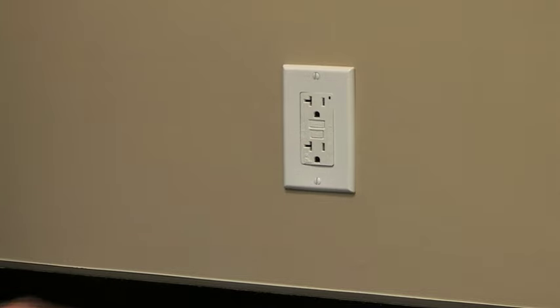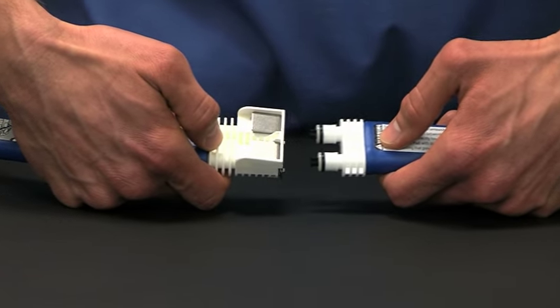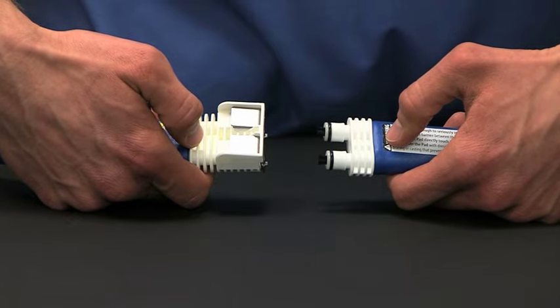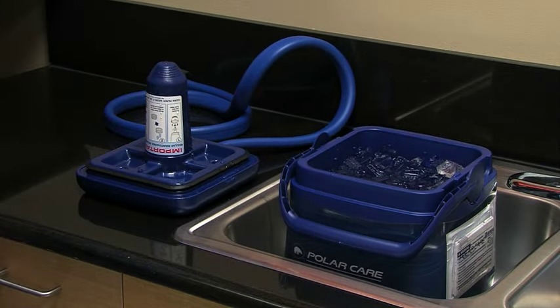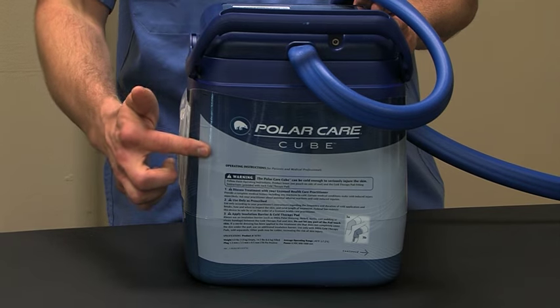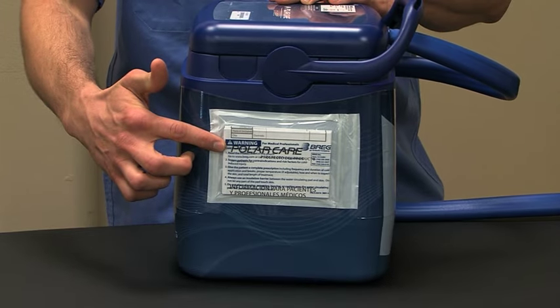To stop or refill the unit, unplug the unit from the electrical source. Disconnect the pad from the unit by depressing the two metal tabs and gently pull the connectors apart. The pad will seal itself and won't leak. Some dripping during release is normal. Turn the lid upside down and place it on a flat surface so extra water gathers in the lid. Then refill the unit with cold water, then ice. If you need a reminder regarding how to use the PolarCare Cube, refer to the operating instructions printed on the wraparound label or the product insert in the pouch on the side of the unit.